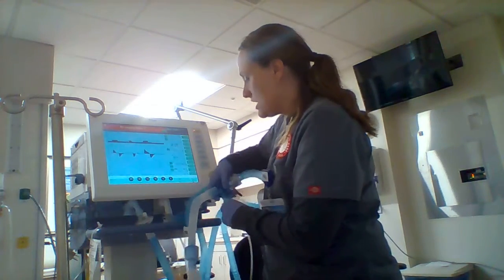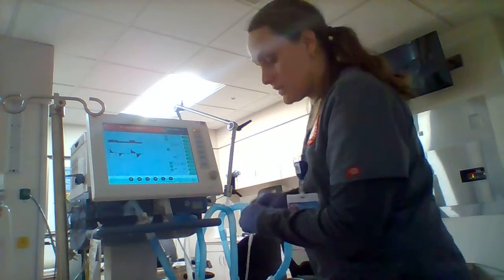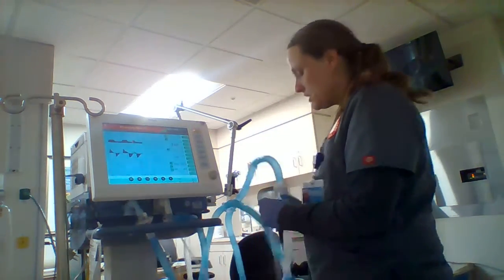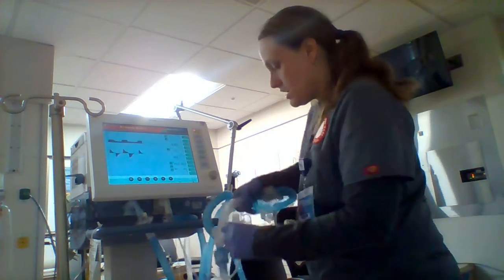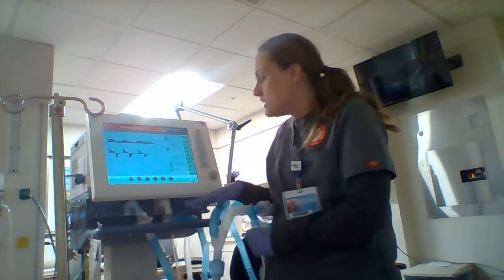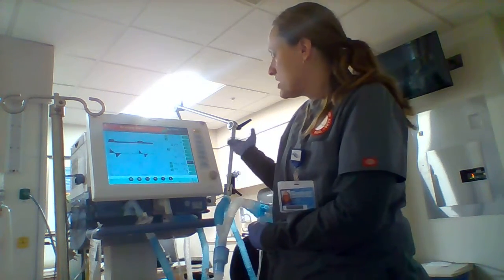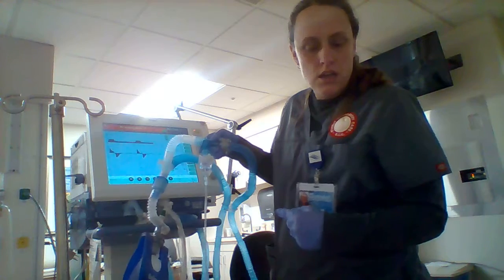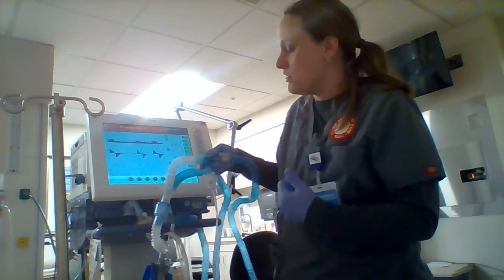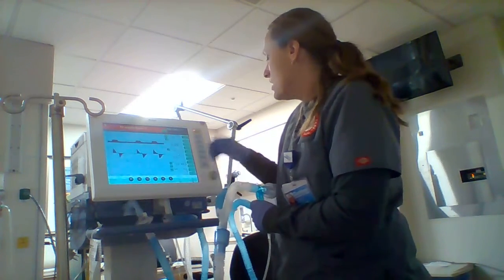So let's say I wanted to get a nebulizer. That'll work. That'll be lovely. Stay right there. So I have my T-piece already in my circuit, which is a hot mess now. Fantastic. This Draeger has the ability to get the nebulizer in line. Just push the nebulizer button. It takes about 15-20 minutes to do it because it only does it on Inspire. So that is a little bit rough. I'm going to turn that off.